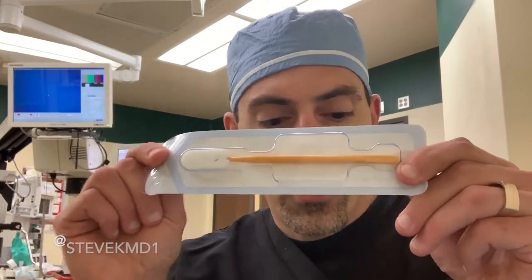Although sometimes we do use a diamond. After the side port blade, we'll use some gel — some viscoelastic material that comes in an injector. That one happens to be yellow too, and we inject that gel.